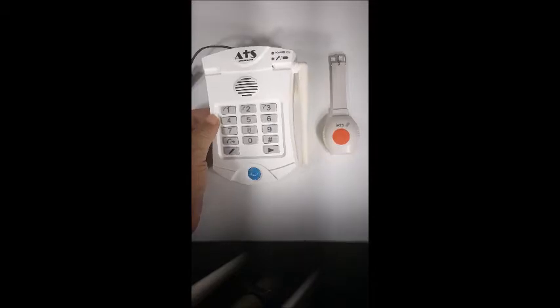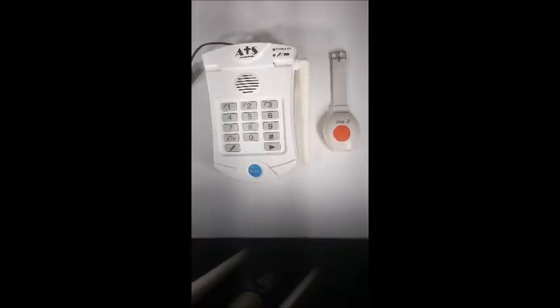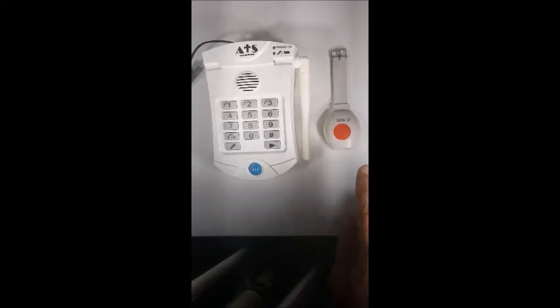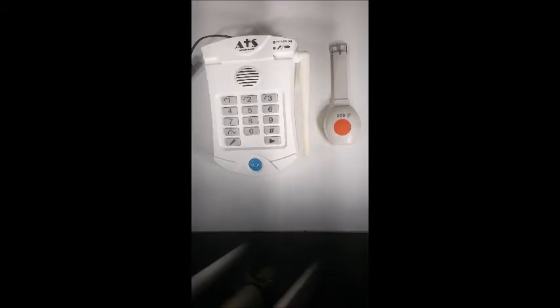Turn the power back on. It'll beep, and then just give it a couple seconds for the red light to stop flashing. Press the SOS button and that's it. The unit is paired.